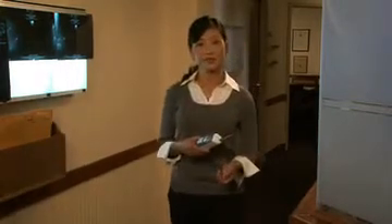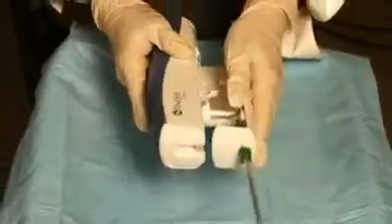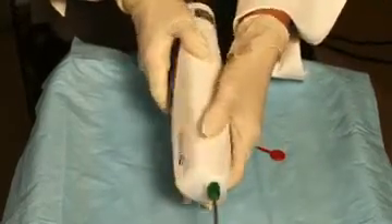There are also direct advantages for medical professionals. There is no console to move, it's simple to set up and clean, and there is minimal waste, so you and your staff can be more efficient. That means less time per procedure and more procedures per day. The compact disposable biopsy probe quickly and easily loads and unloads for improved procedural efficiency.